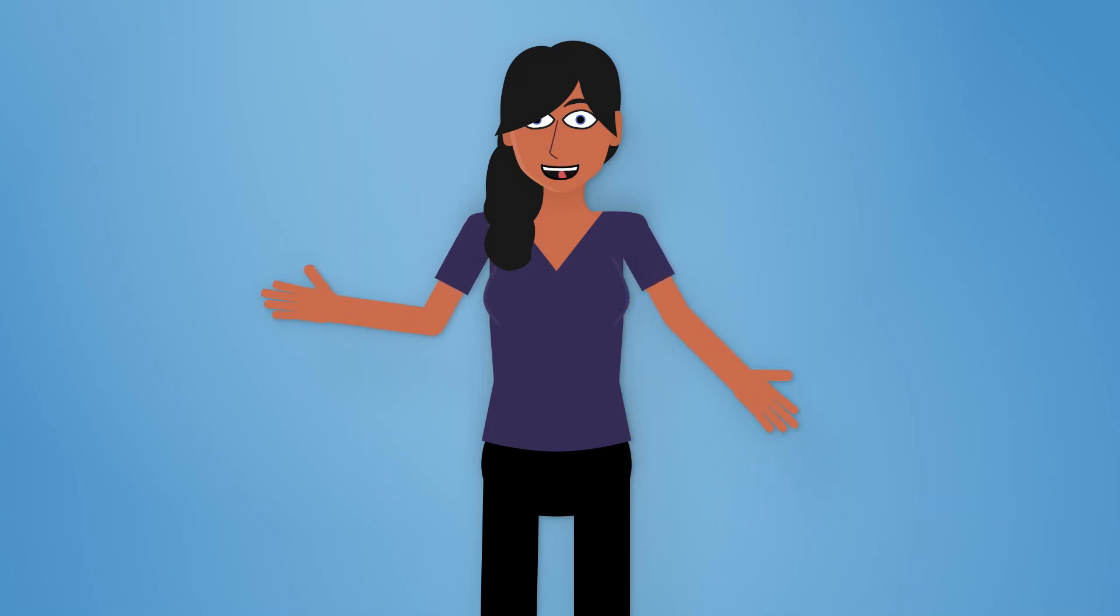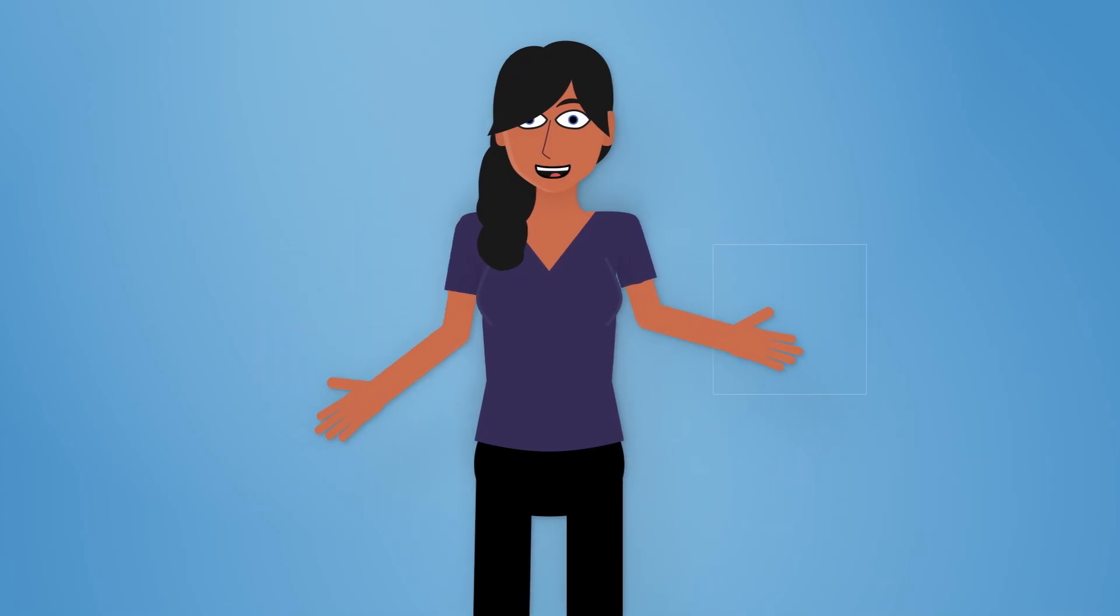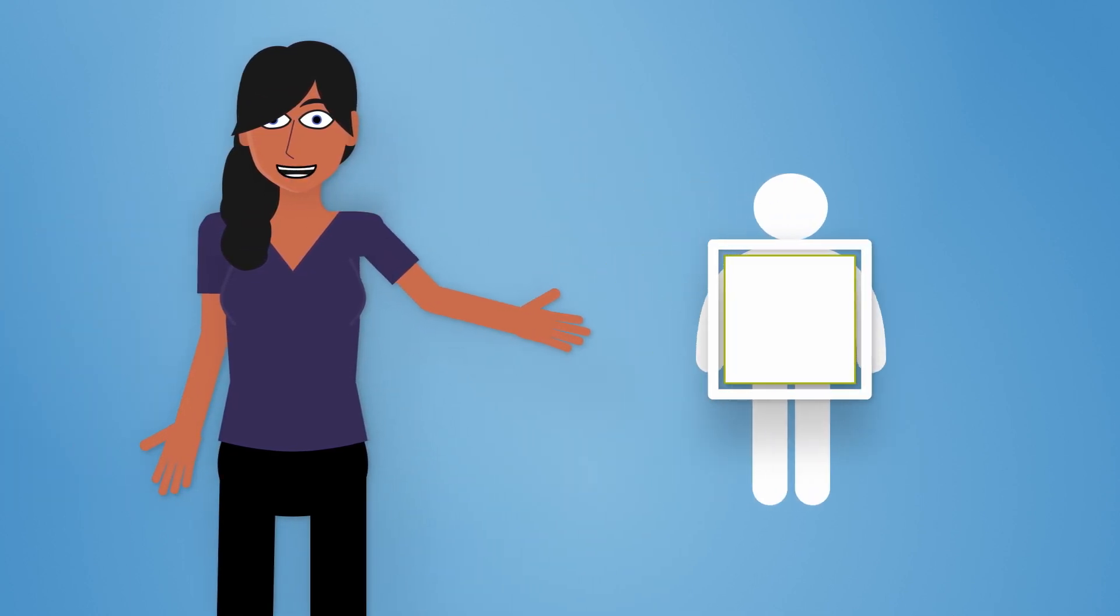Hello, my name is Sydney and I work in the Medical Imaging Department at Dayton Children's. I'm going to share with you about your child's x-ray testing.